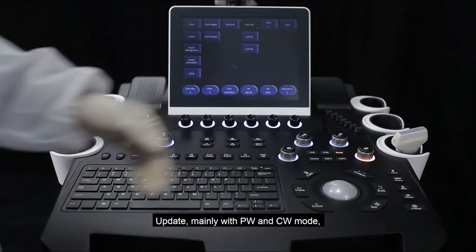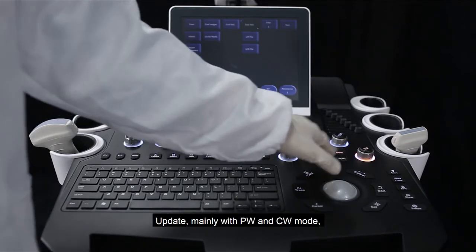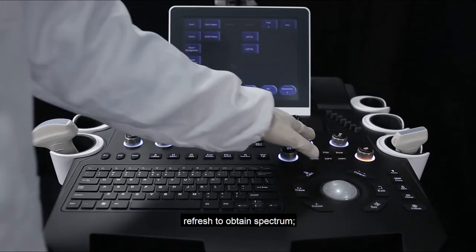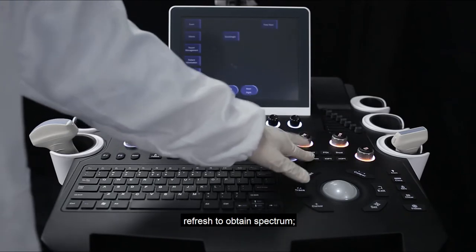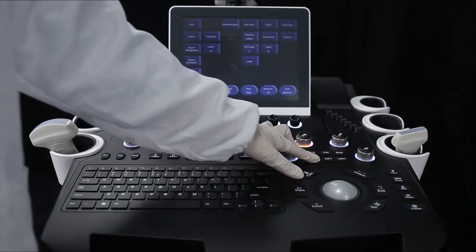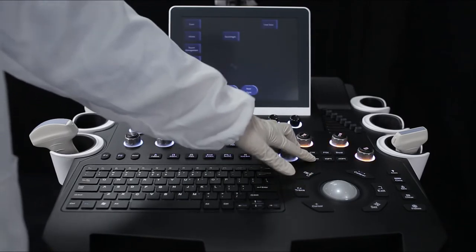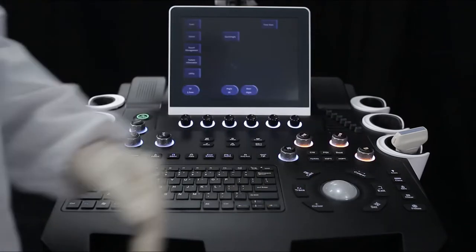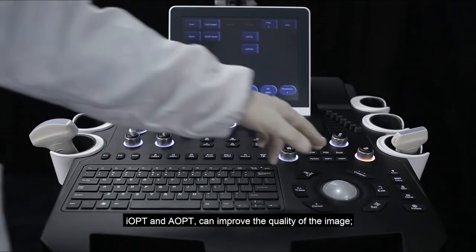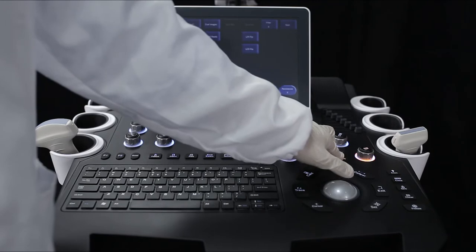The Update button is mainly used with PW and CW modes to refresh and obtain the spectrum. IOPT and AOPT can be used to improve the quality of the image.